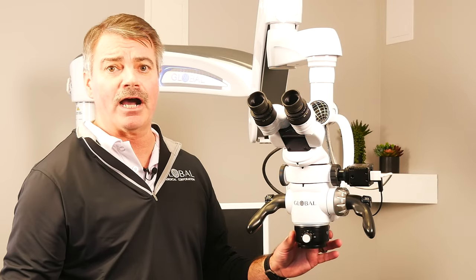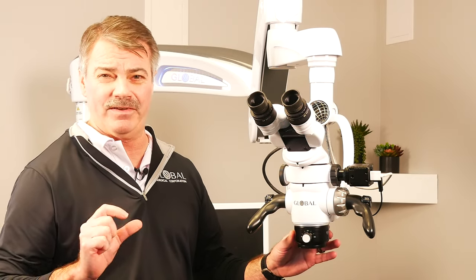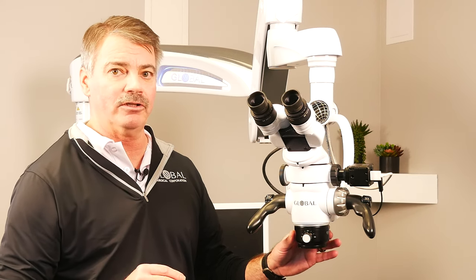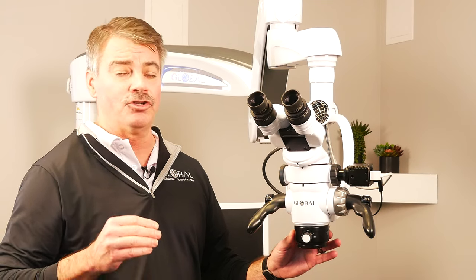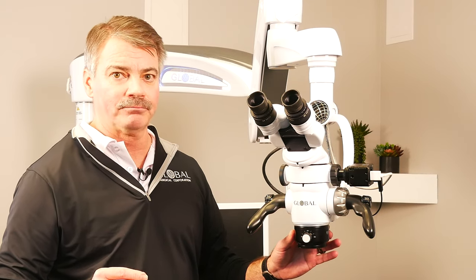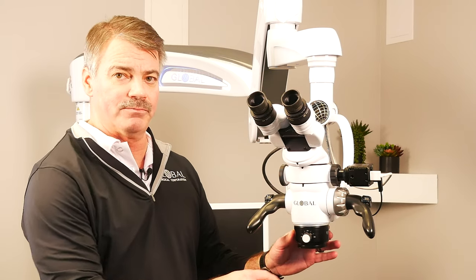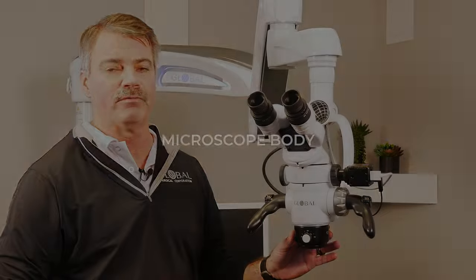The other standard option for objective lens on the microscope is a fixed objective lens, and those come in different varieties: 200 millimeter, 225 millimeter, 250 millimeter, and 300 millimeter. We're finding that most customers today are opting for the multifocal lens because of the flexibility and good ergonomics it provides.